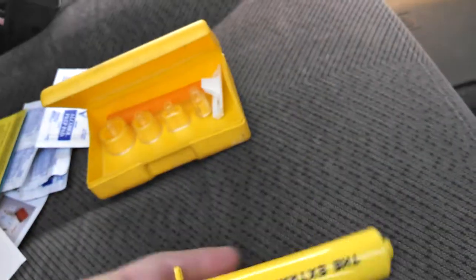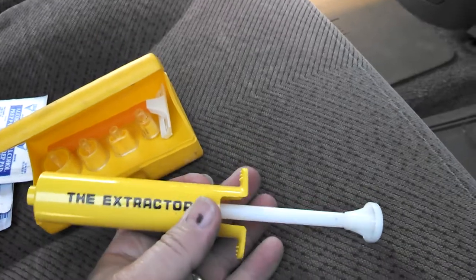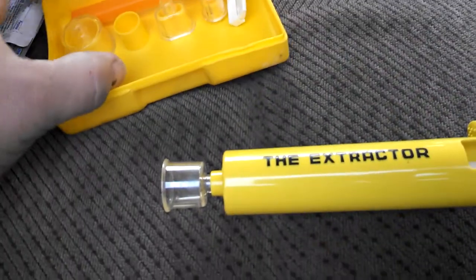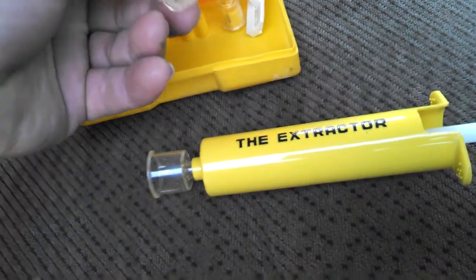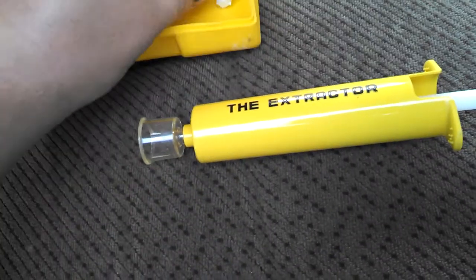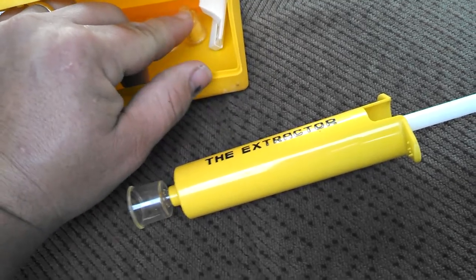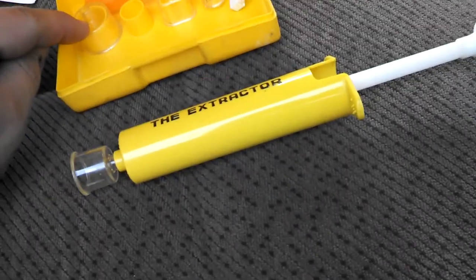This pamphlet was made prior to the kit being assembled, because it did not come with the antiseptic stick or the tourniquet - everything else was in there. It does come with a safety razor. This extractor is a pretty nice little piece of equipment. It works on the principles of a syringe, however it is not a syringe. You pick the size and shape based on the injury - for a snake bite you'd use this larger one, for a bee sting you can use this smaller one.